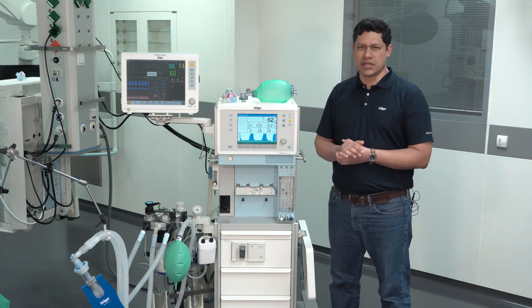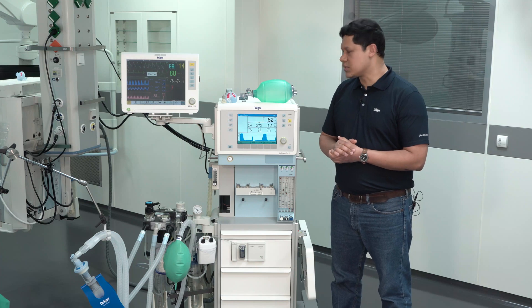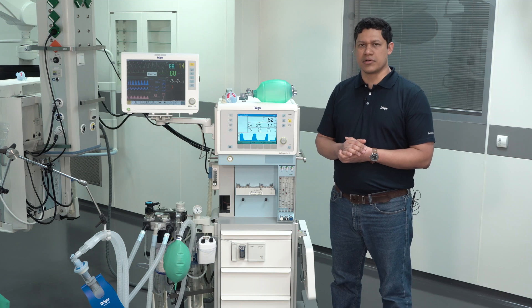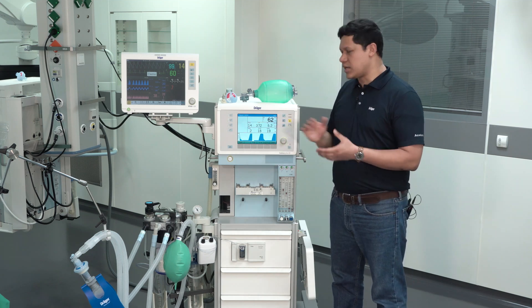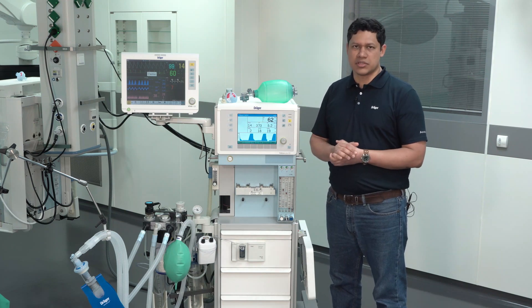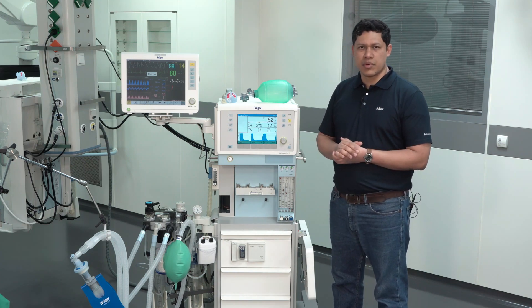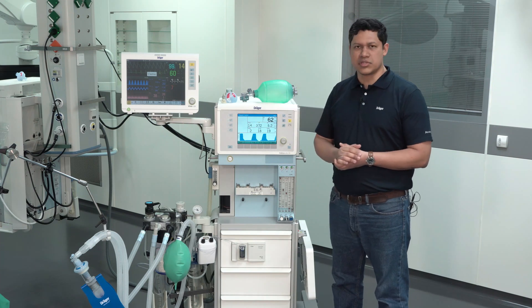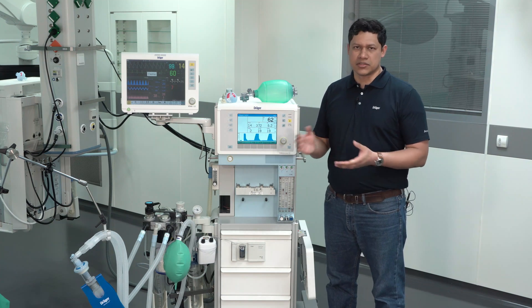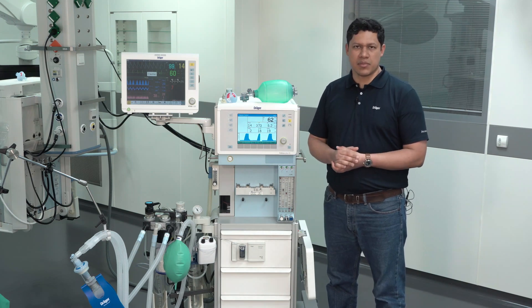The self-test verification on the anesthesia device should be performed every 24 hours. When using the device for long-term ventilation, the minimum frequency is every 72 hours. Keep in mind that the self-test together with the verification of the system will take around 8 minutes in total, depending on the model of the anesthesia device. During this time, to ventilate the patient, you will require either an emergency resuscitator or an additional ventilation device. All details on how to perform the verification and self-test will be explained in an additional video. Thank you.